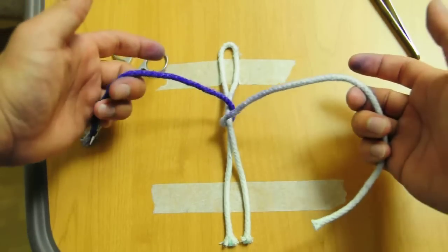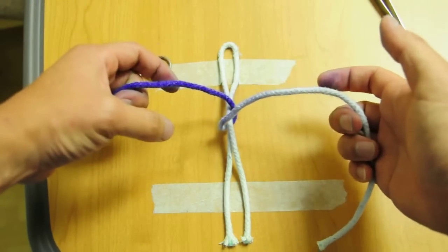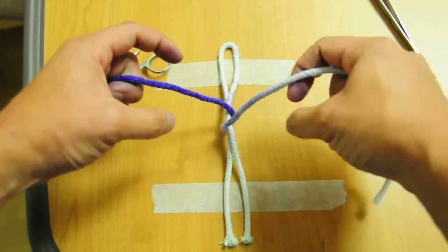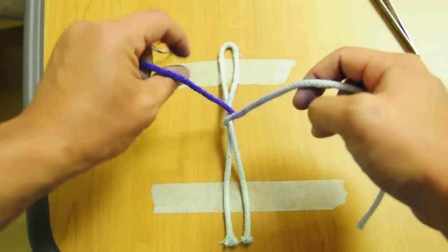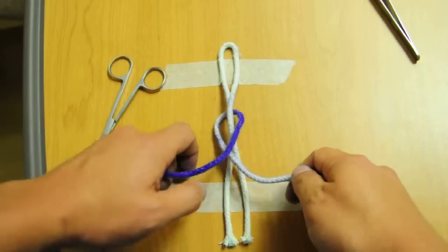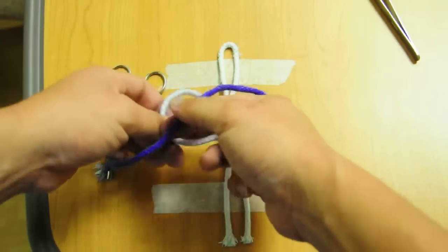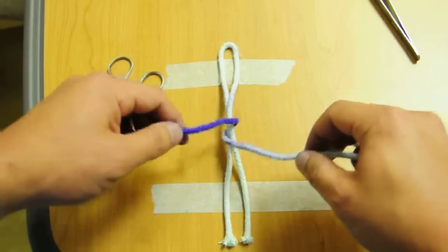So principle is the same. Hold the strands, three fingers on each side. You're going to make your little C's to push knots under and over, over and under. You can always see where the sutures are lying because sometimes your free end is over and sometimes your free end is under. So just go ahead and make sure you see which side's over.